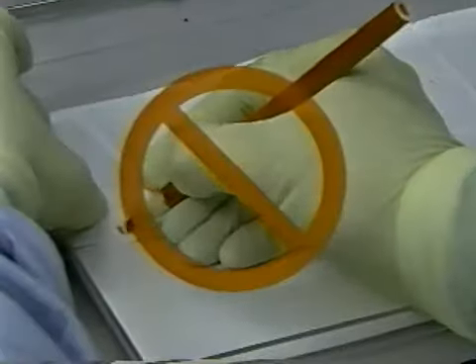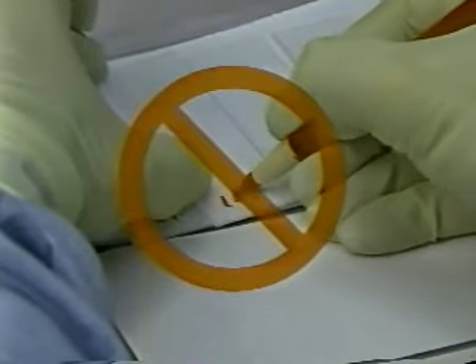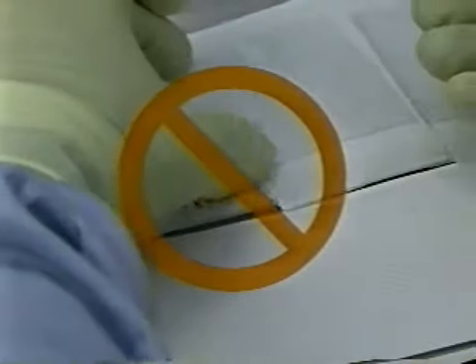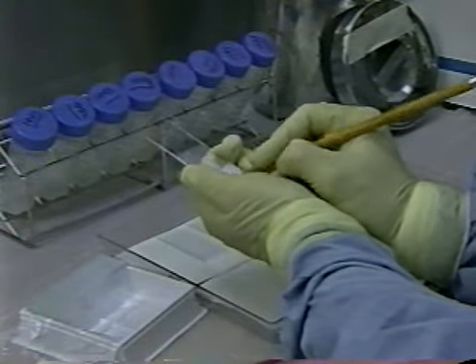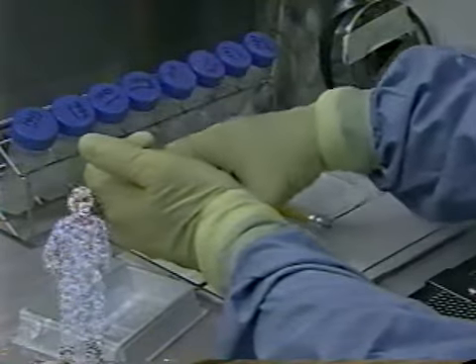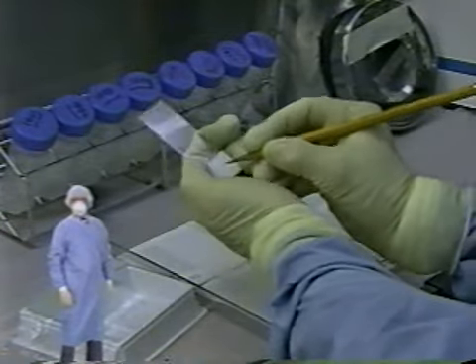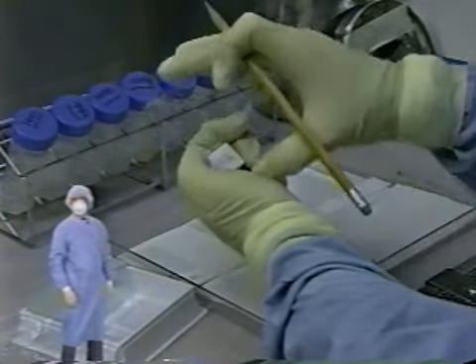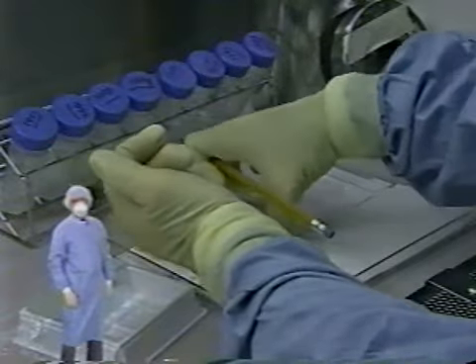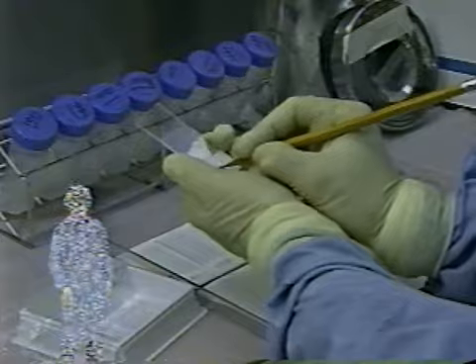Do not mark slides with wax pencils or any other substance that may flake off and cause problems when the stained smears are evaluated microscopically. Do use lead pencils or barcode labels to put identifiers on the slides. To avoid later confusion when correlating test results with patient records, be certain that slides are labeled with sufficient identifier information so that no questions exist as to specimen source.